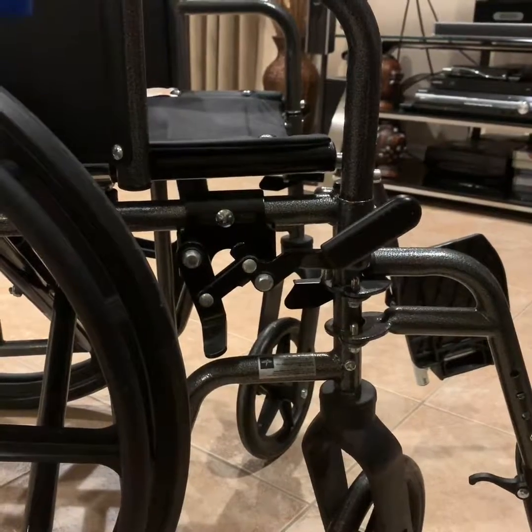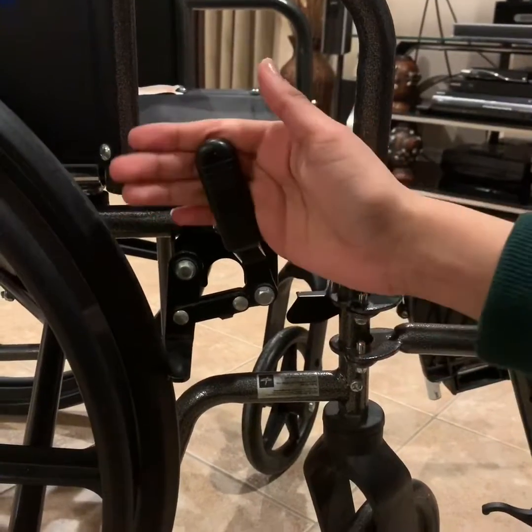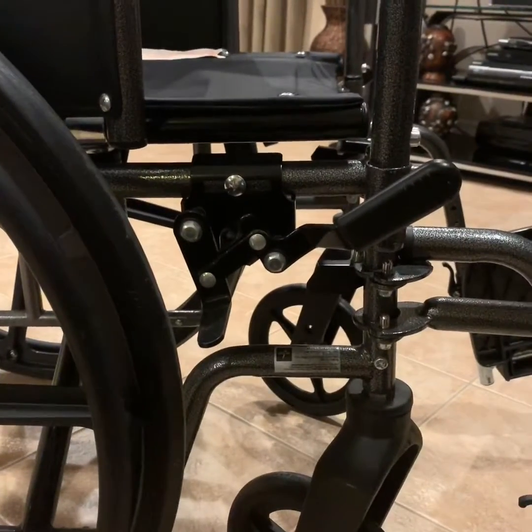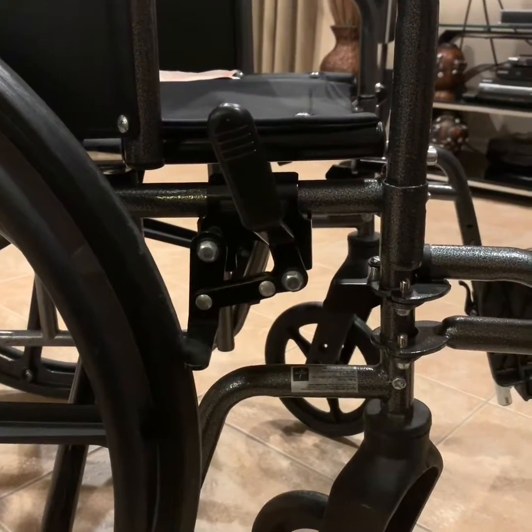There are locks on both sides of the wheelchairs that look just like this. To lock the wheelchair, place it up just like that so it is facing up, and then to unlock the wheelchair, bring it back into the position so it is not locked and it is able to move. For safety precautions, make sure that the wheelchair is always locked from both sides just so to prevent future injuries.